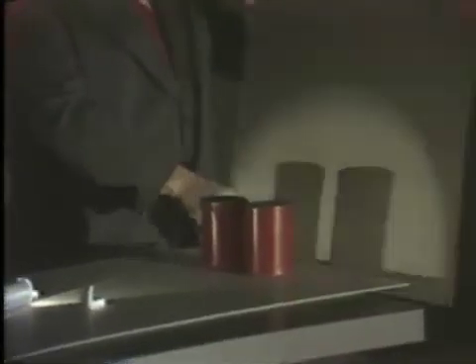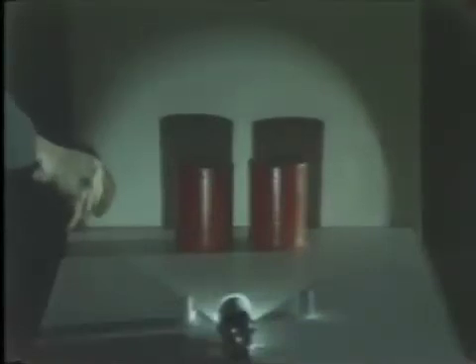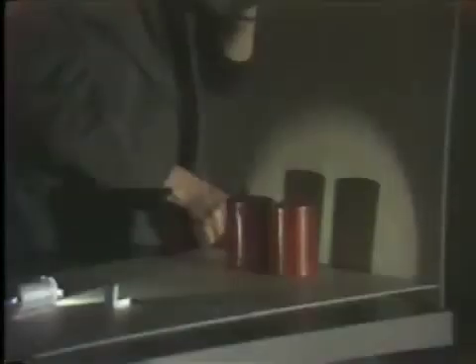Well, there's only one thing left to try and that is to see whether the position of the screen has anything to do with whether or not we have overlapping. So we'll move the screen this way — doesn't overlap. Move it that way — it doesn't overlap. We'll turn it around — it doesn't overlap. Nothing I can do with this screen will make the images overlap. So the horizontal angulation alone is the cause of overlapping.